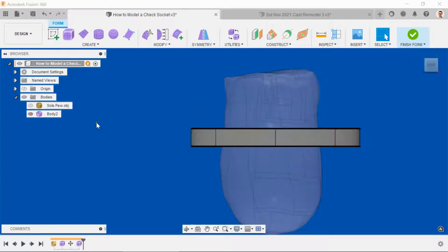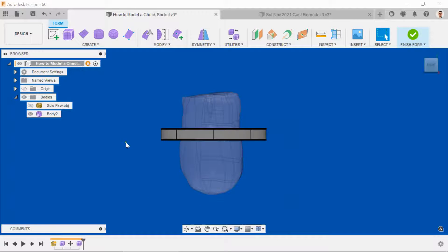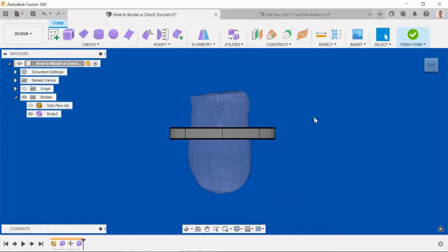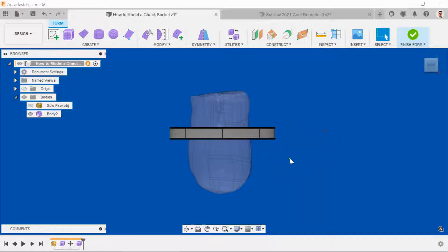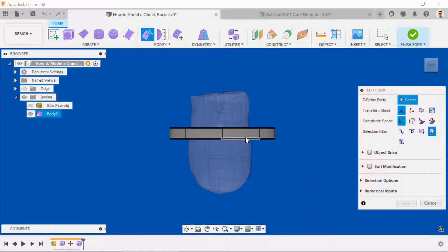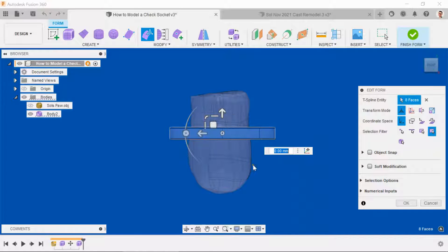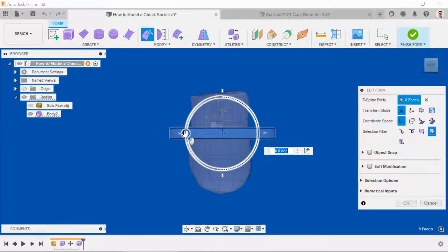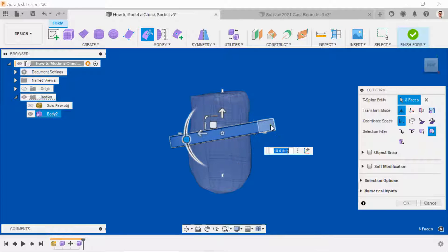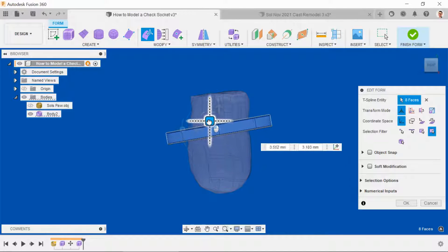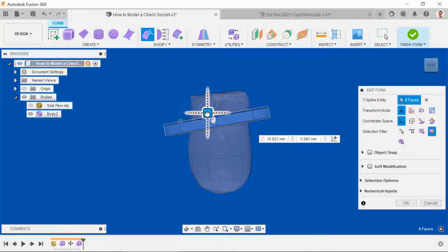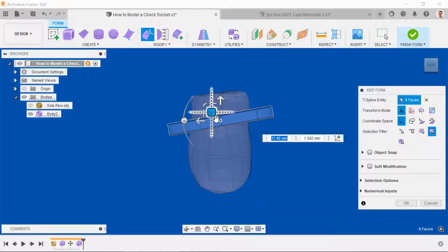So let's get our body back up and visible, and we're going to right-click and click Edit Form on this body. What we want to do is rotate it slightly. We're looking for this end to be somewhere up here and for the front end to be somewhere around there. That'll do nicely.